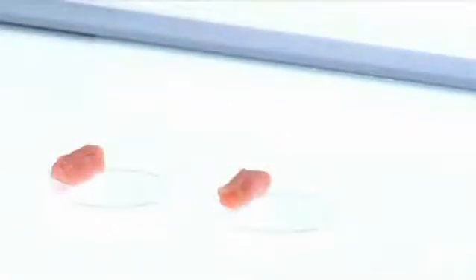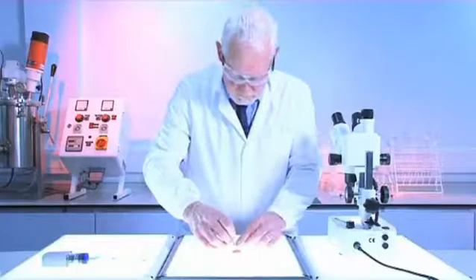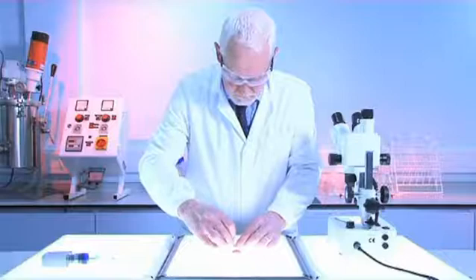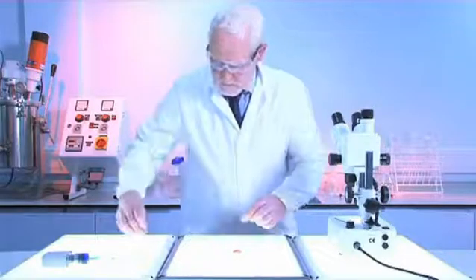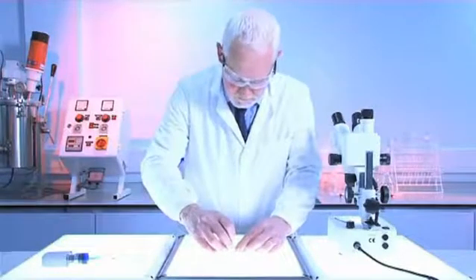Next, we lay similar sized sections of dressing: one a piece of Aquacel dressing with Hydrofibre Technology, and one a piece of the alginate dressing Sorbsan, over the pork in each dish.